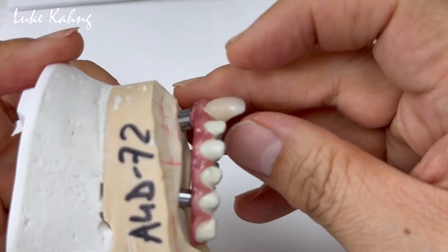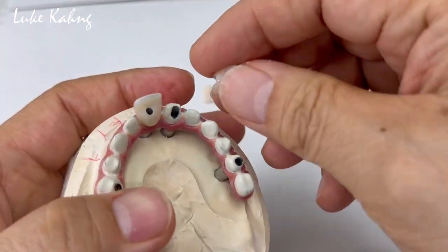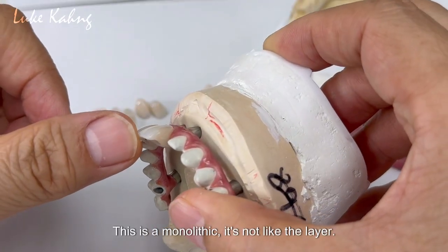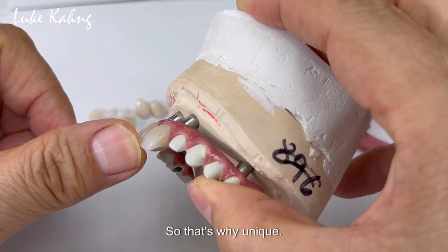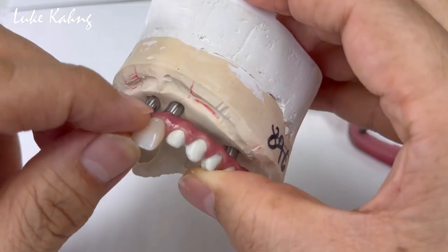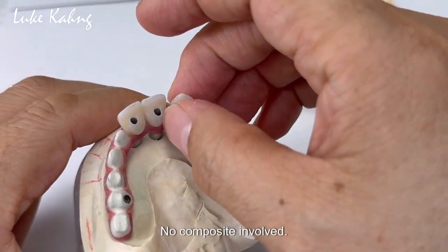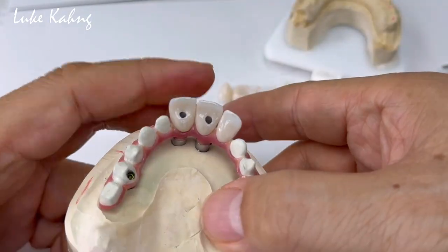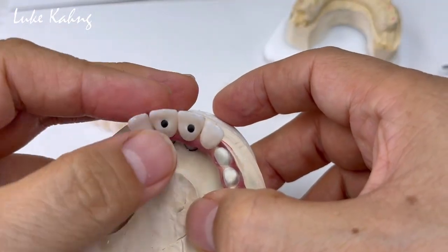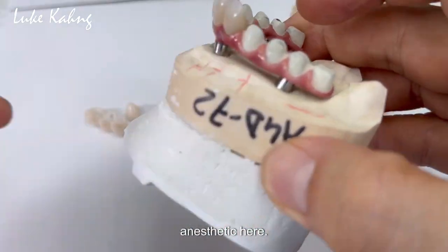See here — and then make the good amount of color. This is a monolithic. It's not layered, so that's what makes it unique. This is the porcelain — pink porcelain. No composite involved. It's individual crowns fabricated one by one — exceptional aesthetics.